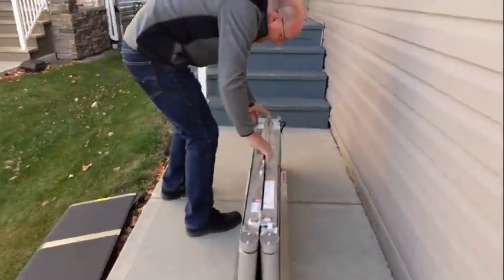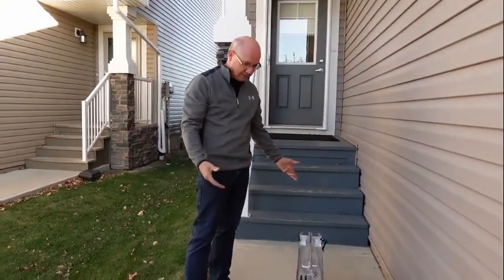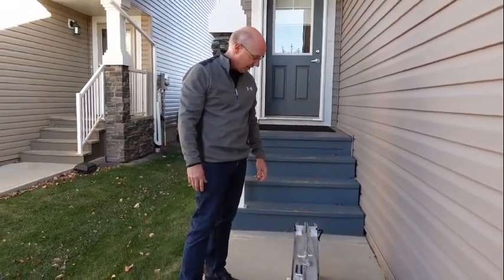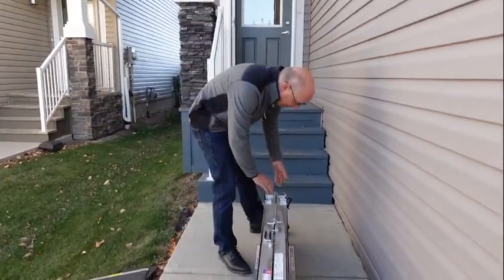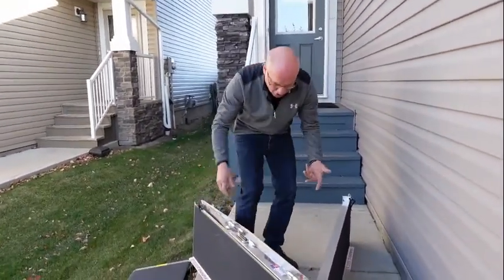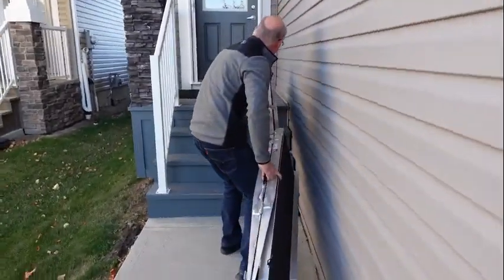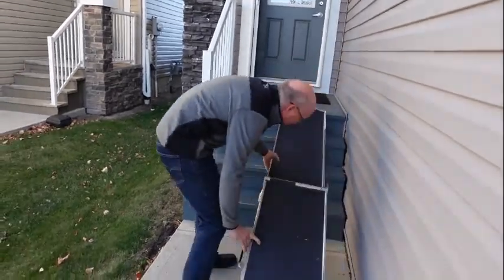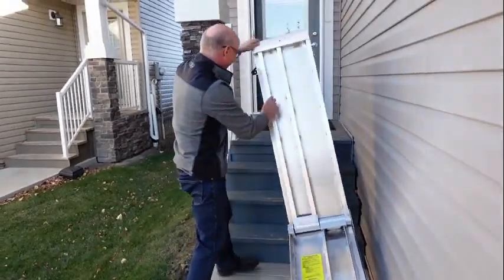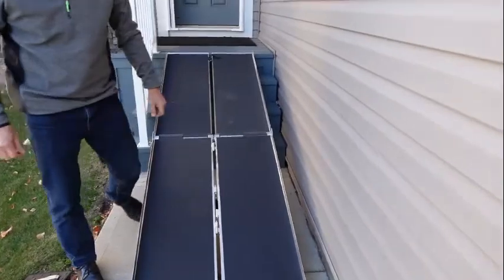This is the multi-fold suitcase ramp — same as before. We showed this with vans, and we're just showing it at a house. It's actually quite nice. Like I said, it'd ideally be longer. It's got the bent end like we mentioned. In this case we're just trying to get them home, so you just unfold it and lay it out like this. Perfect.